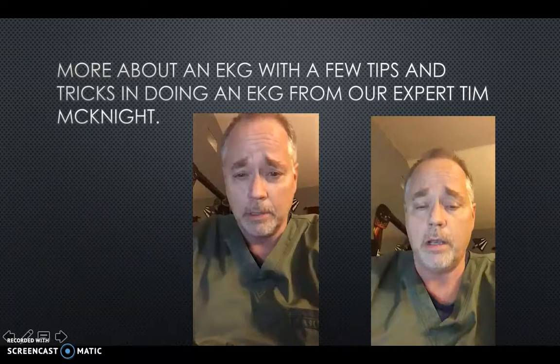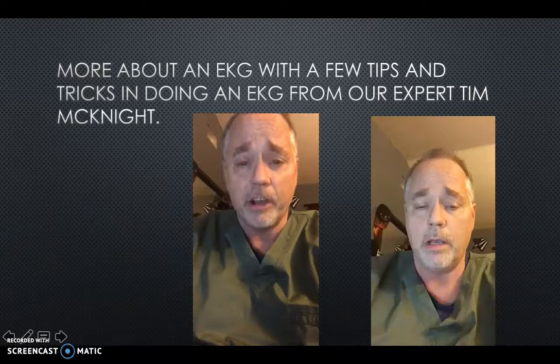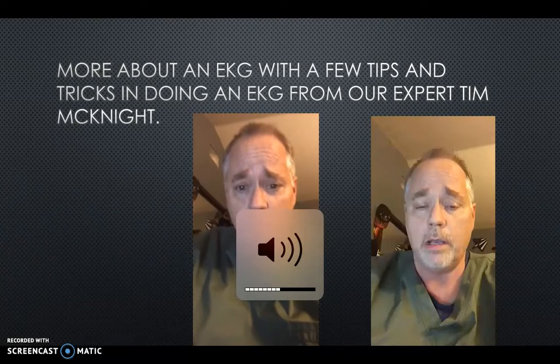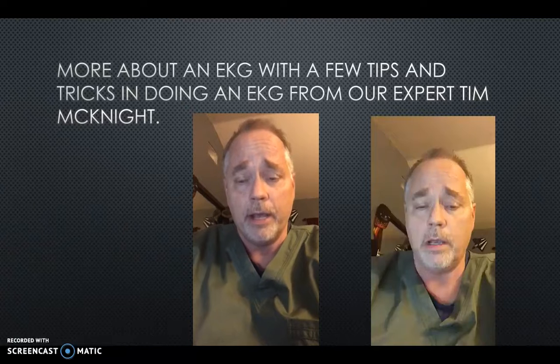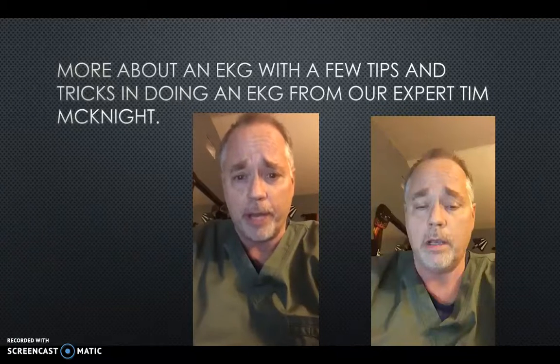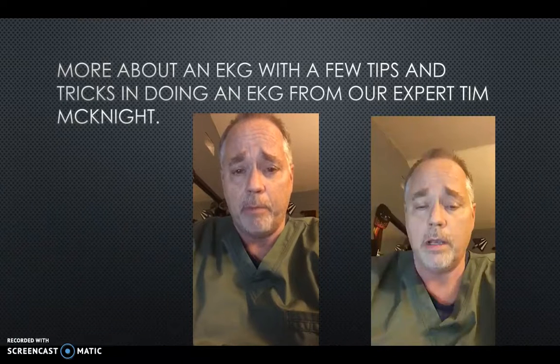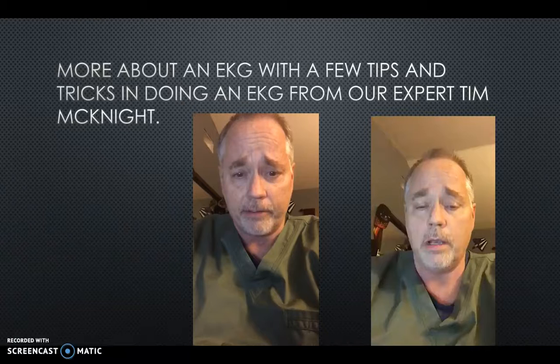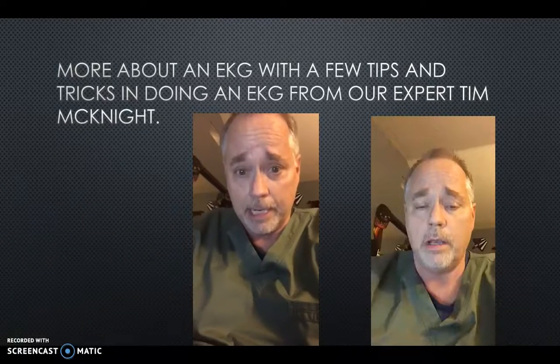Here's Tim. Good evening. My name is Tim McKnight. I'd like to talk to you a little bit this evening about the acquisition and the setup for an EKG. Of course, the purpose of an EKG, we've talked about it already a little bit, is to essentially take a picture of the electrical activity of the heart each time the heart beats.